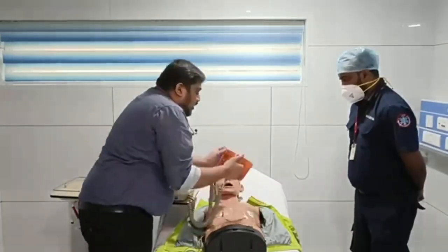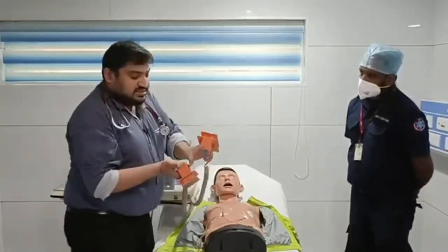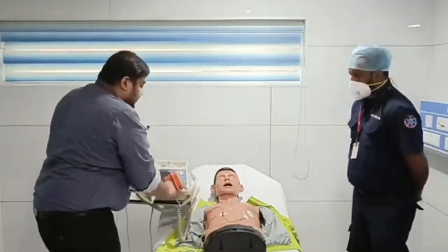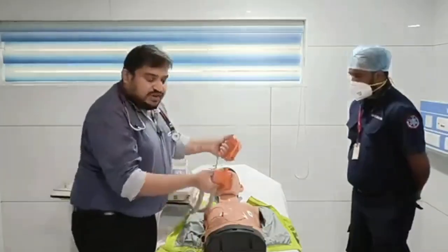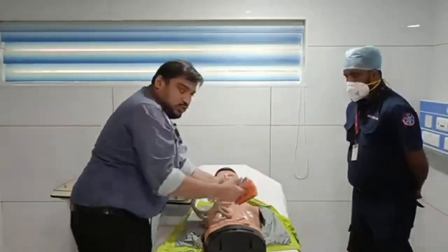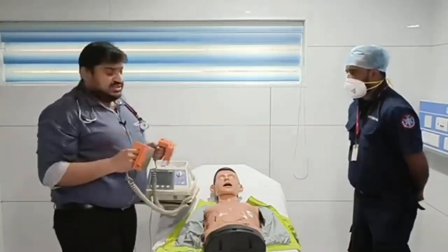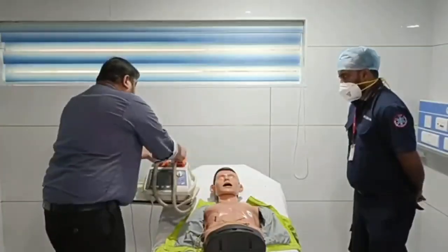And there will be two buttons here. You can see the two buttons here, one button here and one button here, and this is the charge button that I have been mentioning. Also there is a charge button here. So you charge the device, apply it, and deliver the shock. Soon after you deliver the shock, you initiate your CPR. So that is in your cardiac arrest. So that is regarding your defibrillation.